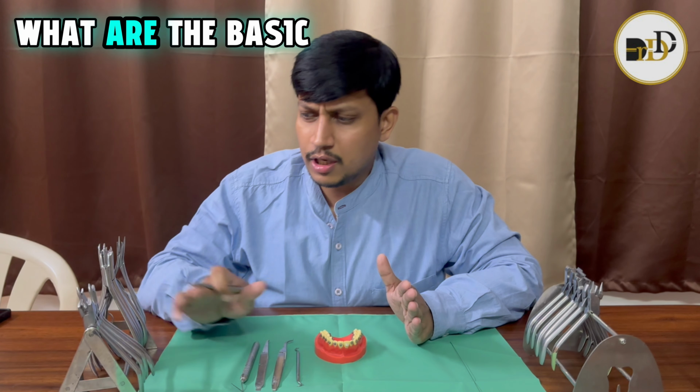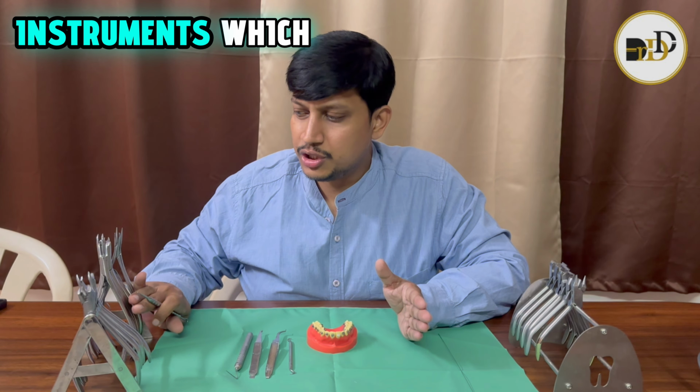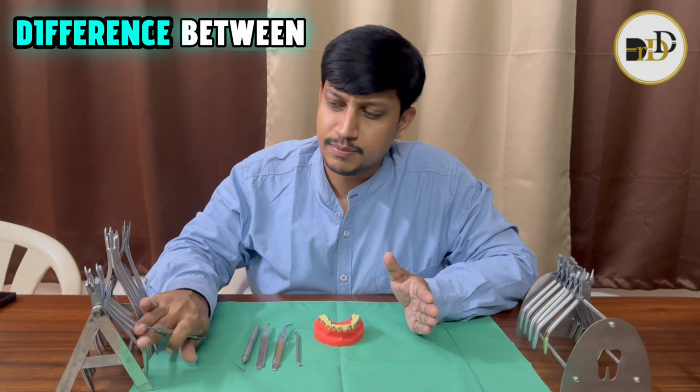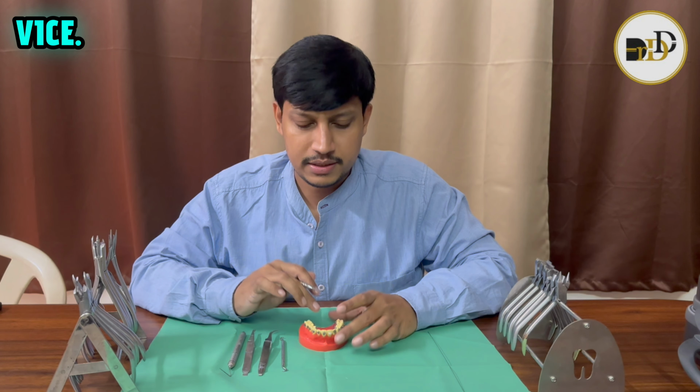In that, I am going to show the basic regularly used labial instruments for day-to-day clinical practice and how they are useful, the special lingual instruments, what the difference is between the regular instruments and these lingual instruments and how they help lingual practice, and the bending instruments which are useful for lingual practice and fabrication of the wires.